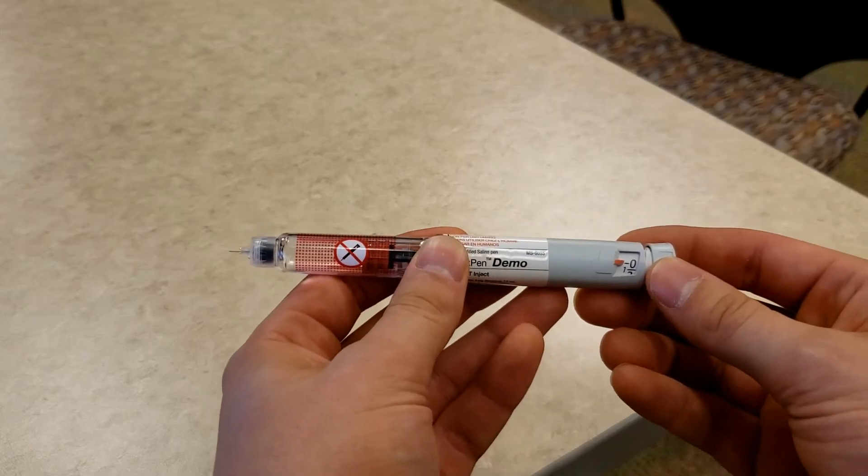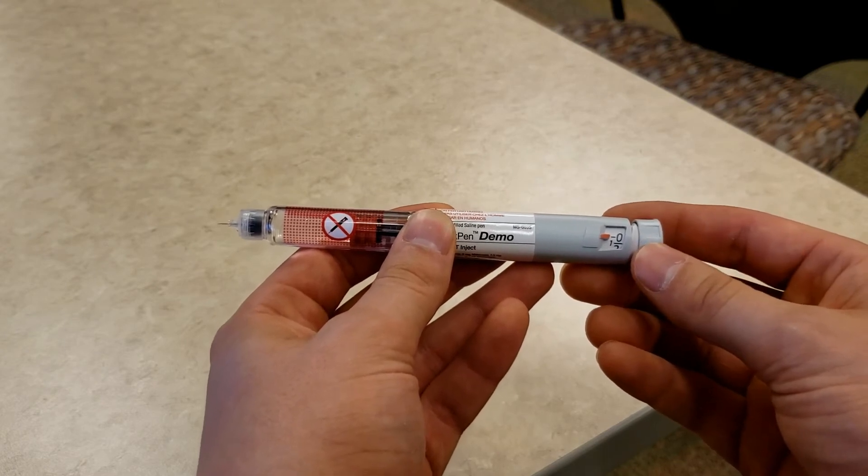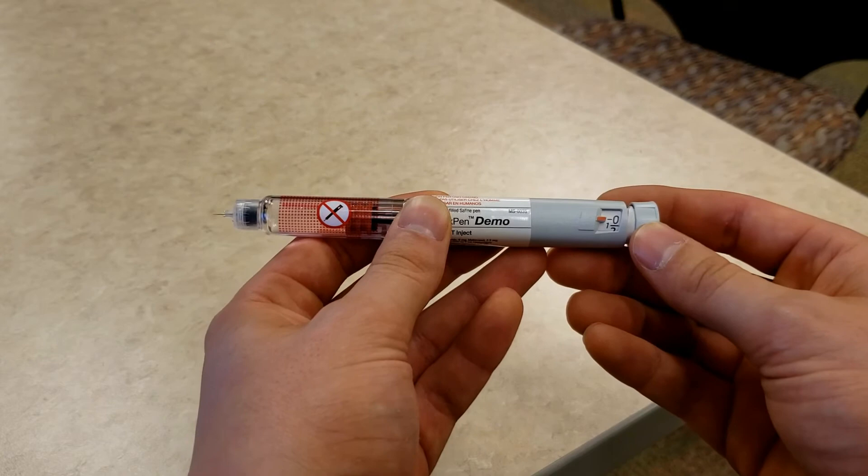Now that the pen is primed, you can turn the dial to the dose that you will be taking. Since I am taking 14 units in this demonstration, I will turn the dial to 14.